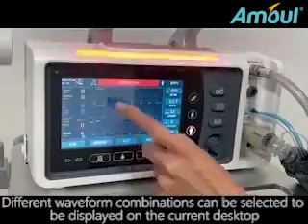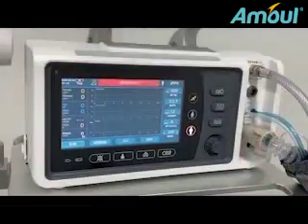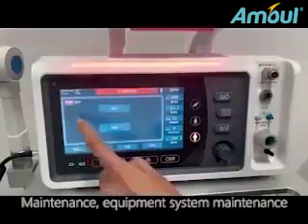Different waveform combinations can be selected to be displayed on the current desktop. Time: main interface time setting. Maintenance: equipment system maintenance.